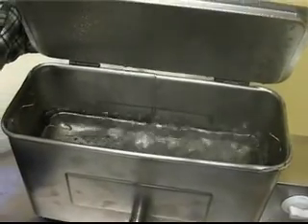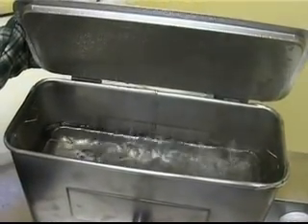This training module deals with the electric instrument sterilizer, which uses boiling water to disinfect the instruments. This type of instrument sterilizer is also named a water boiler or water bath.